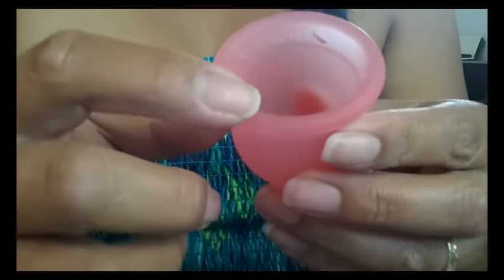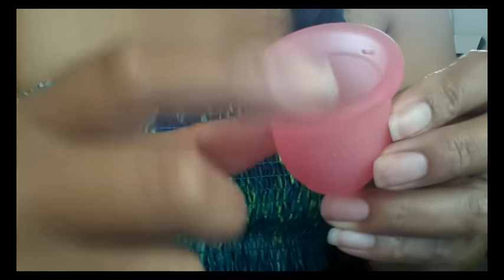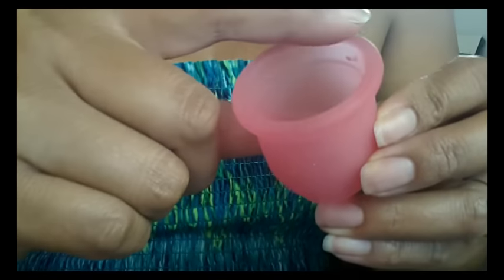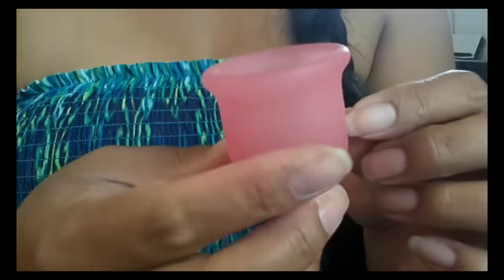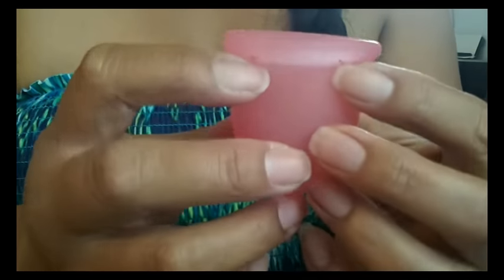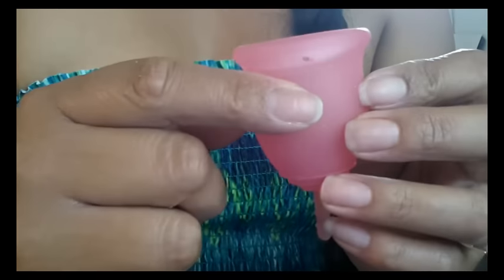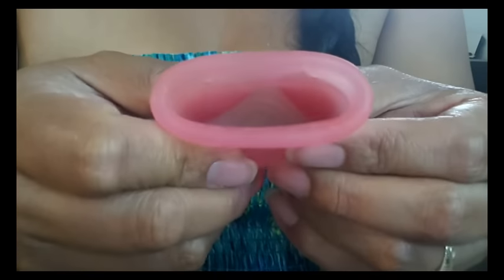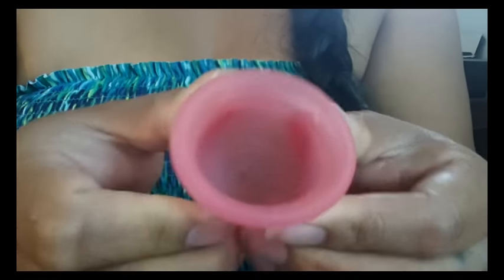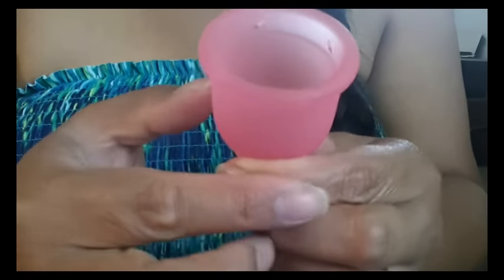There is another seam that goes right around the top of the rim — you can just see it there. It's not as finished as the rest of the cup, but I could barely feel it with my fingertips, so I don't think you're really going to have a problem with that. There are four suction release holes right at the rim, and they're positioned diagonally to the side — not straight down or straight up. They're not evenly spaced around the cup, but they mirror each other when you press the cup together. Their name "Lena" is molded into it, and there are no other molding lines or numbers on this cup.